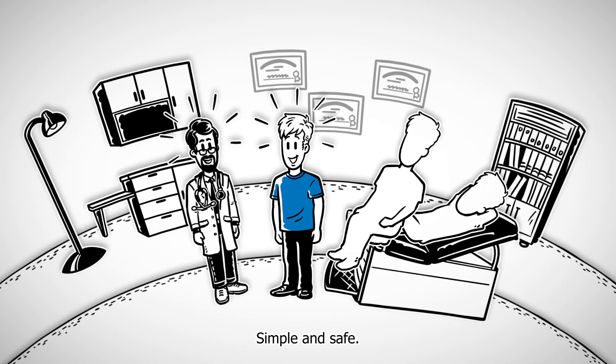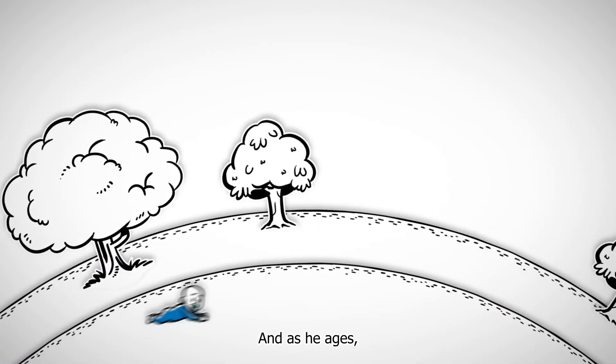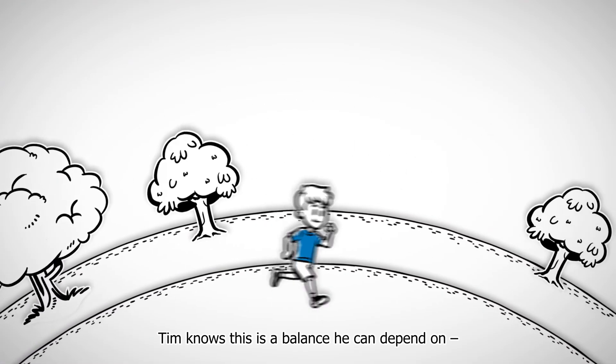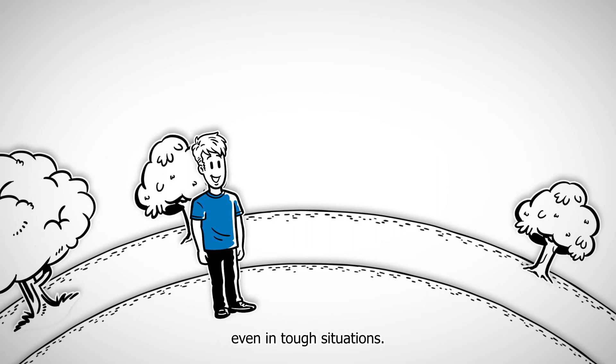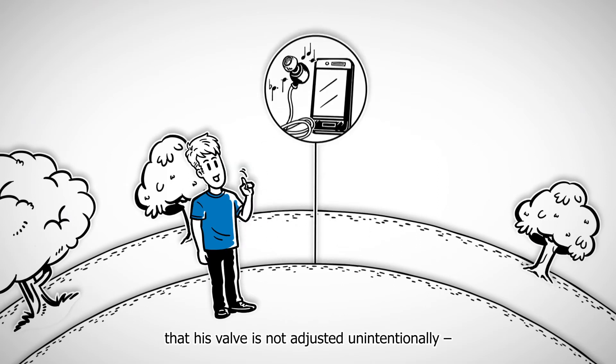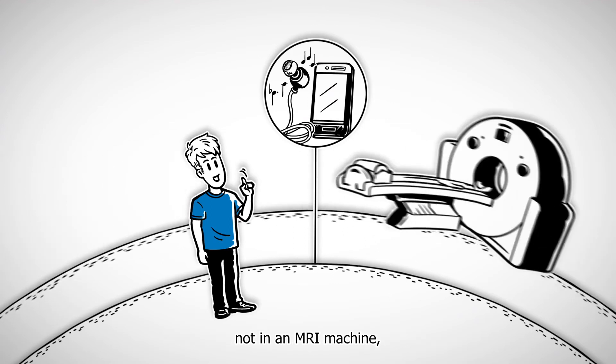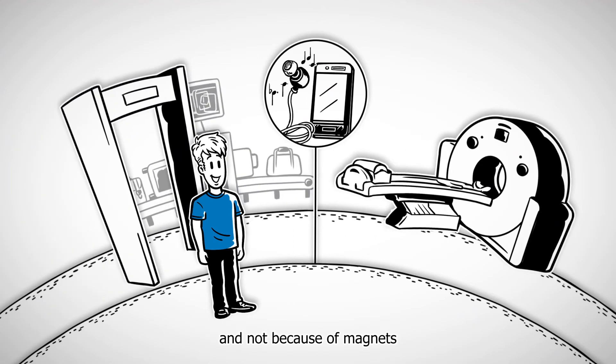Simple and safe. As he ages, Tim knows this is a balance he can depend on even in tough situations. It's important to him that his valve is not adjusted unintentionally, not in an MRI machine and not because of magnets he uses in daily life.